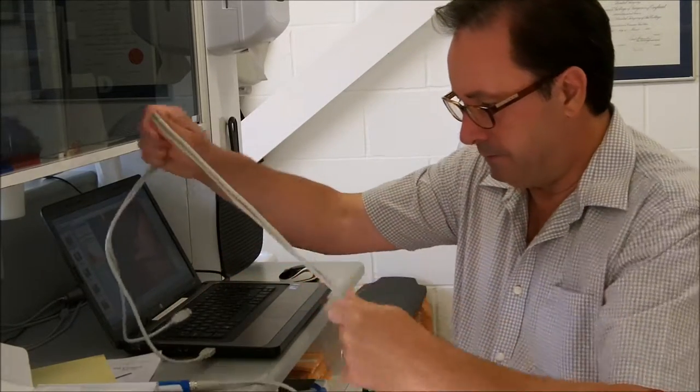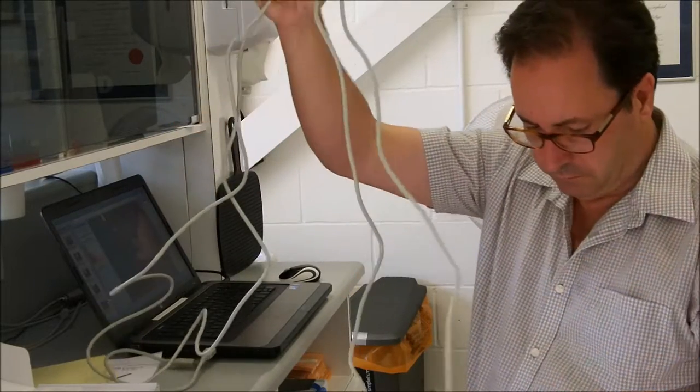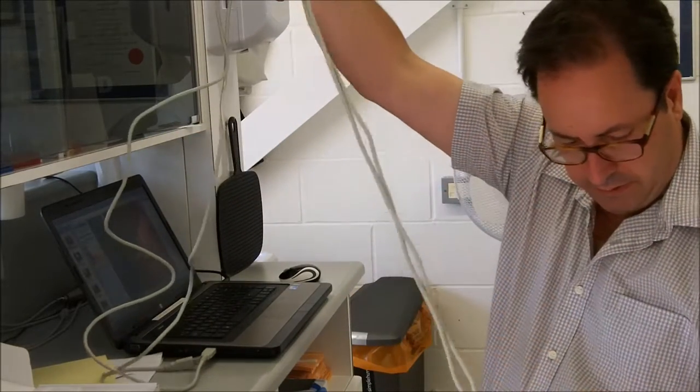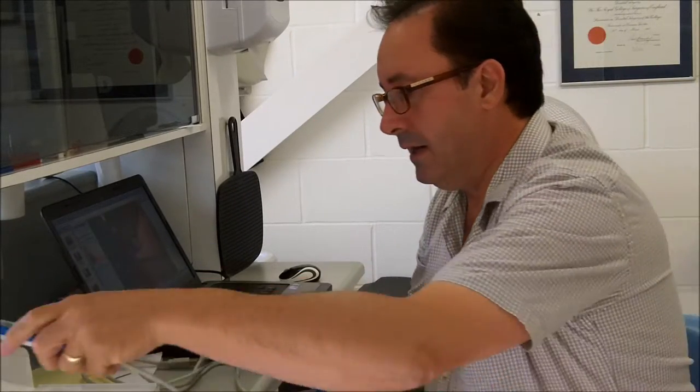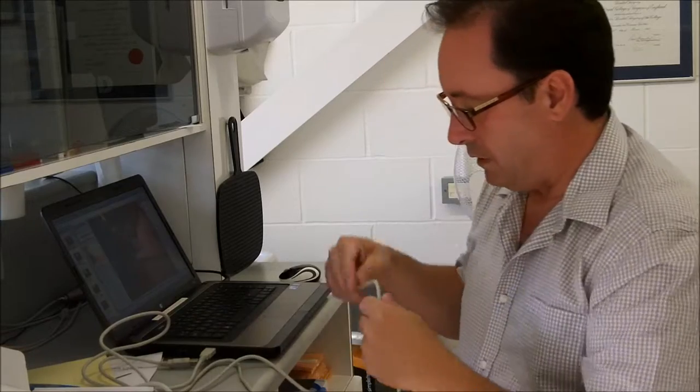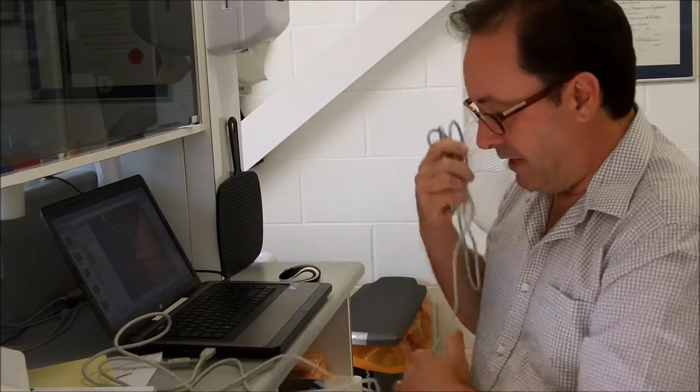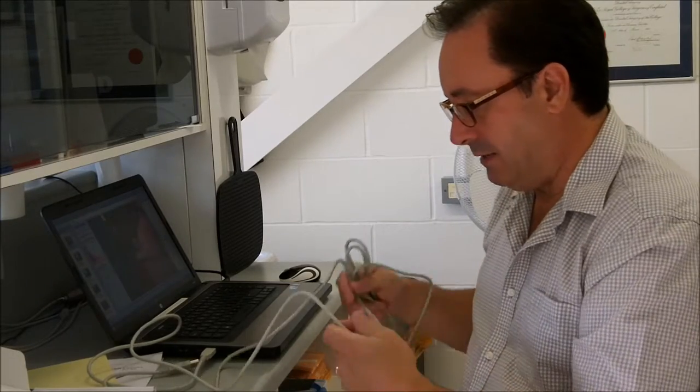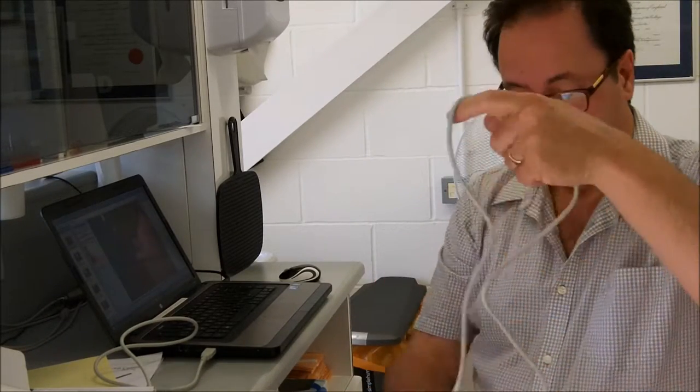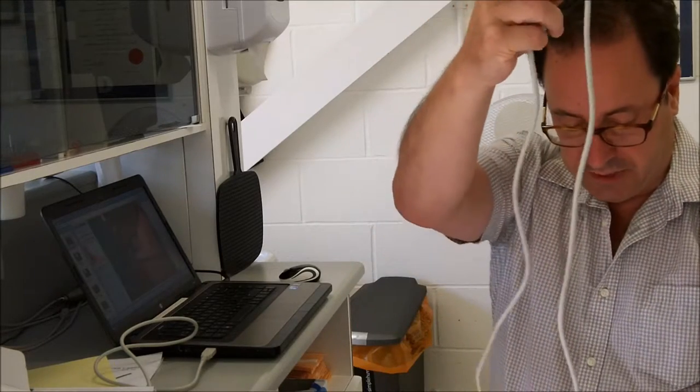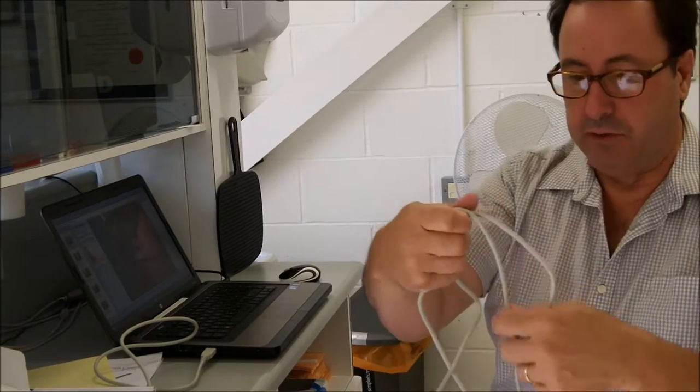So if I had to guess, and really, with such a short test, it is only a guess as to which one of these is worth the money. I would say the MD740 is the one I would choose. Otherwise, they are almost identical in every respect.